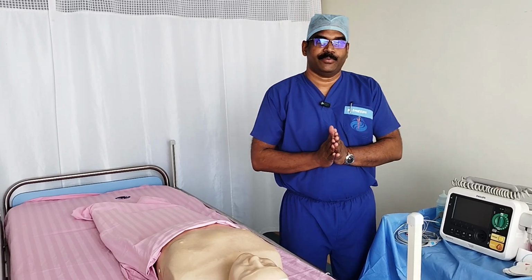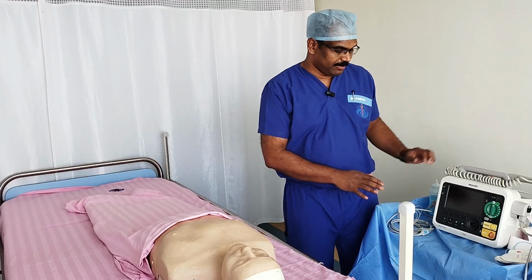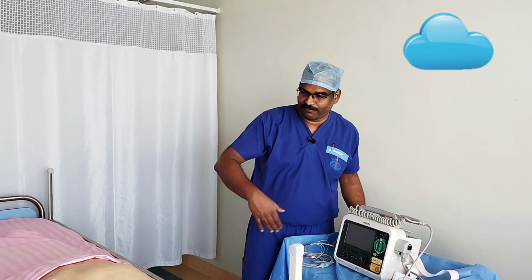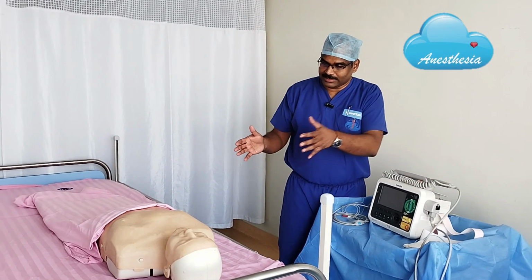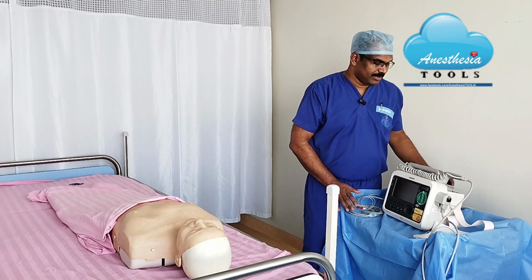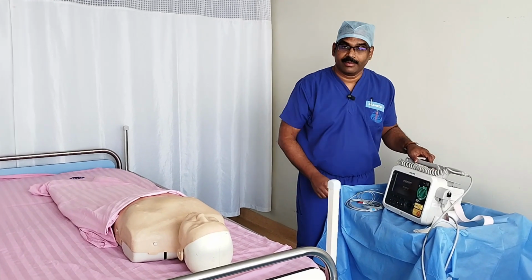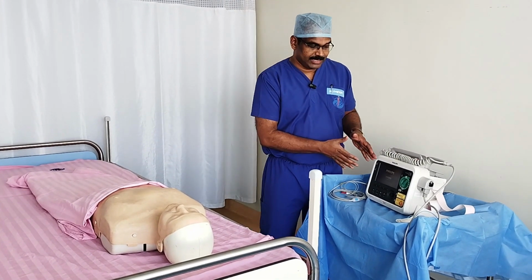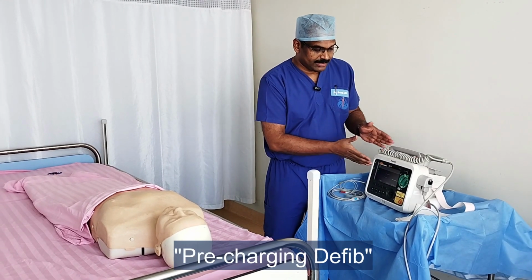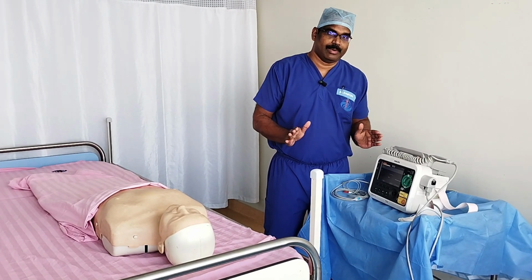So in a cardiac arrest scenario, if I am assigned the role of defibrillation, what I do is I'll bring the defibrillator from the crash cart, position it so that I won't interfere with the flow of activity, that is the chest compression, airway, IV access person, etc. So I'll keep it there, power it on if possible, and then for an adult victim, I'll dial 200 joules if it is a biphasic, or whichever is the maximum energy available in this defibrillator. I can dial it, and then I'll get ready for the first opportunity to defibrillate.